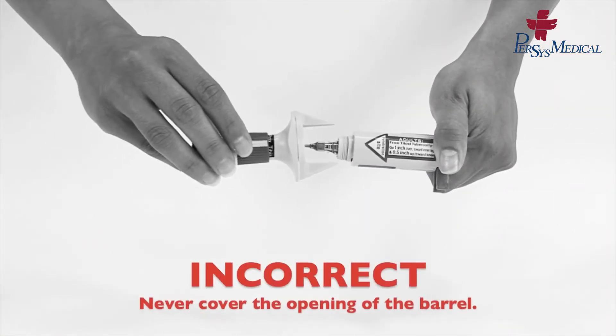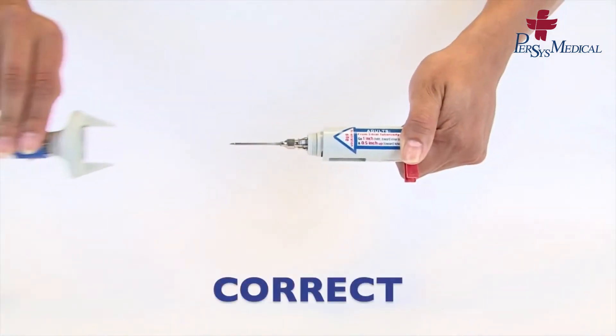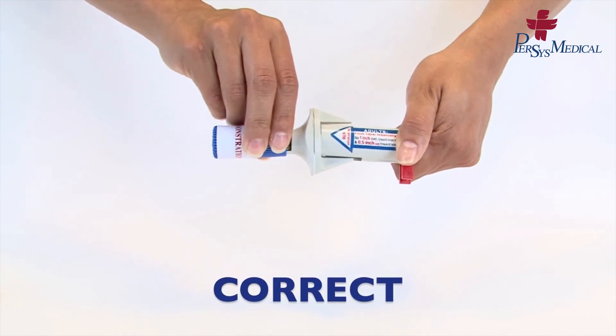Always keep the spring and piston pointed away from you. Screw on the bottom barrel of the device.